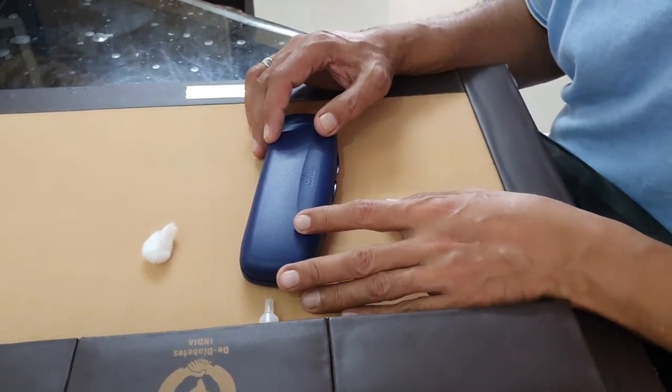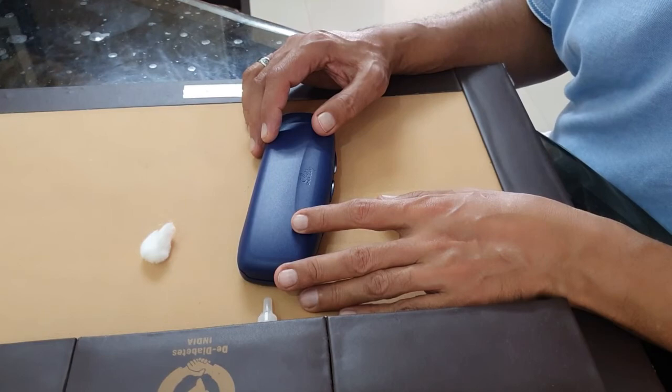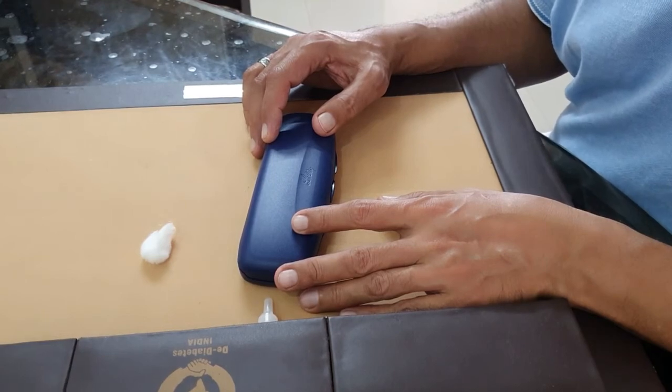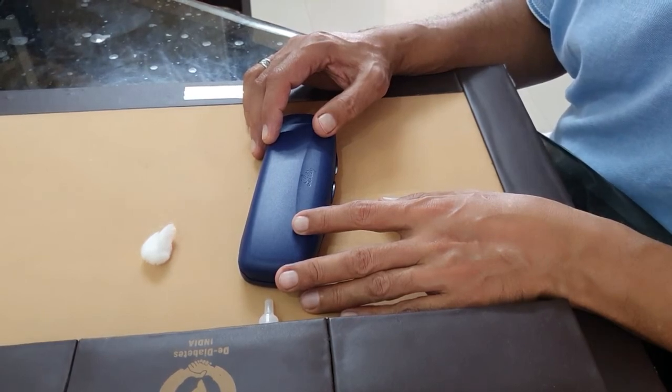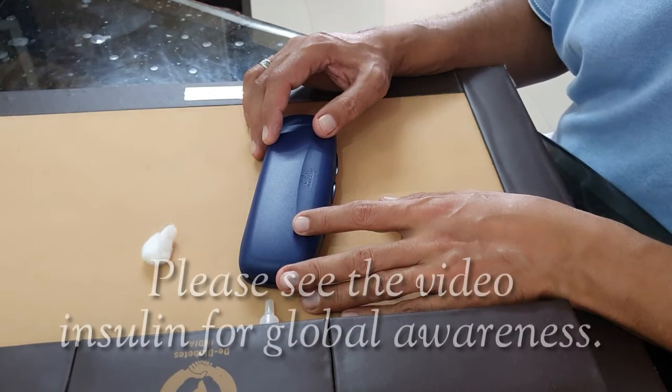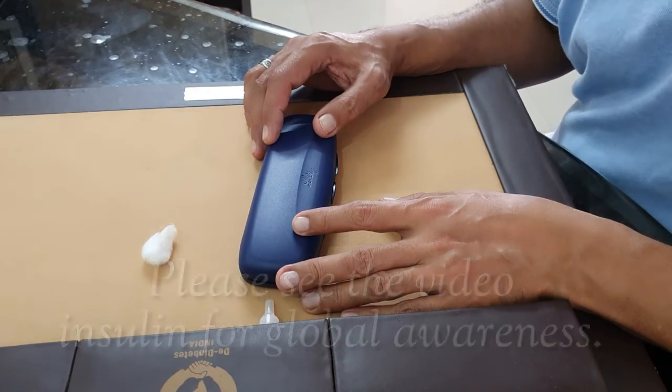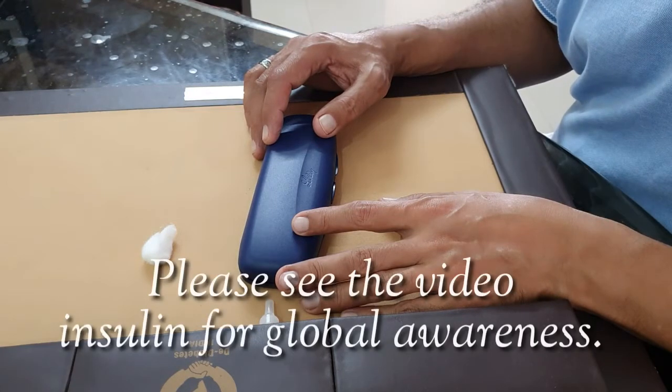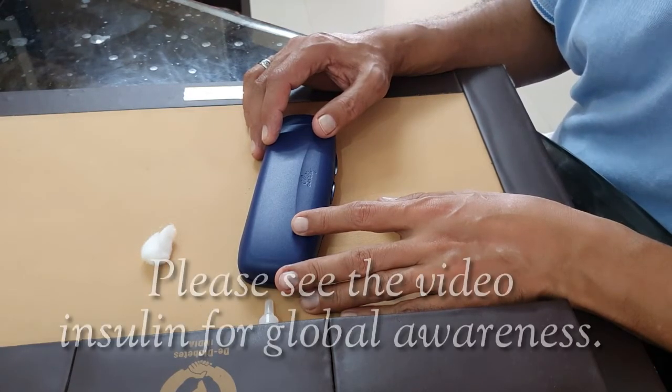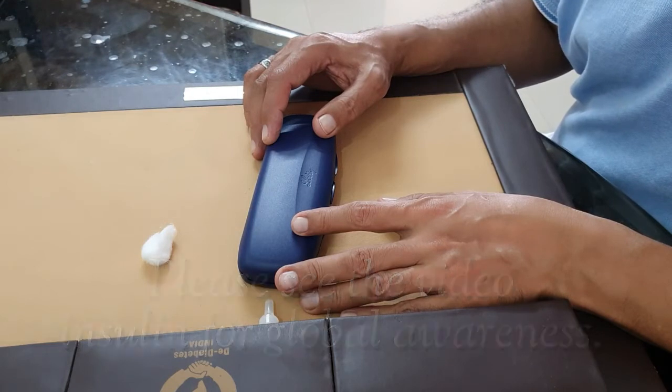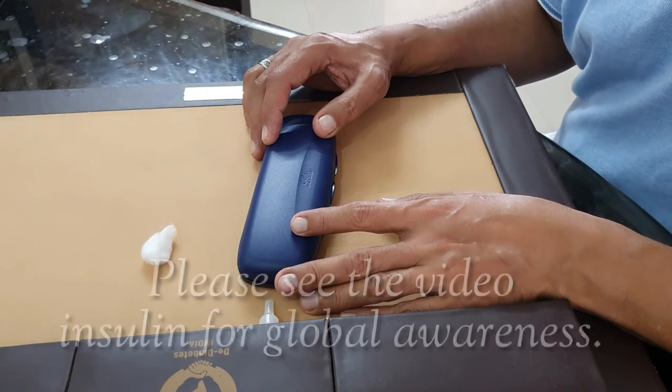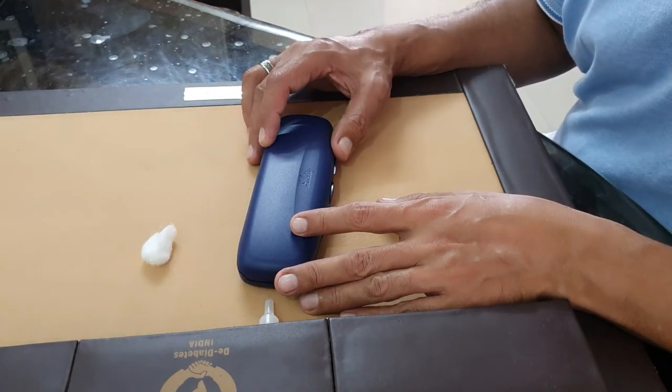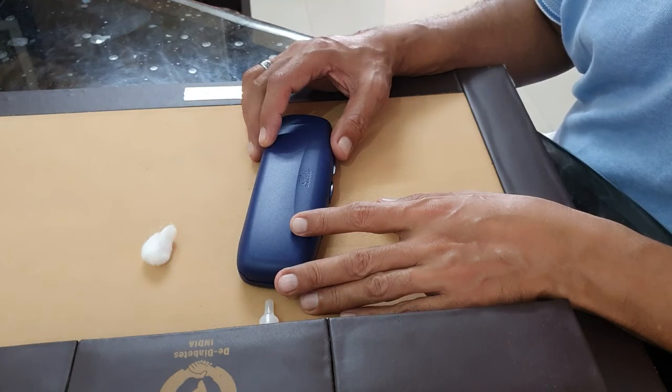This is to show you how to use the pen. Please see the original video on insulin - the entire thing about insulin types, where to inject, how to rotate the injection sites, and other things will be there in that video. That is about the use of insulin pen. Thank you.